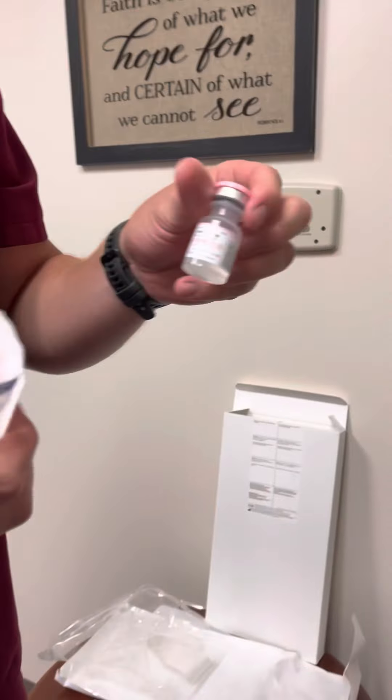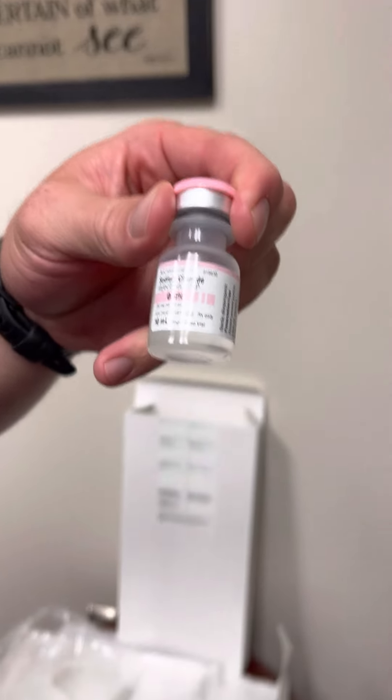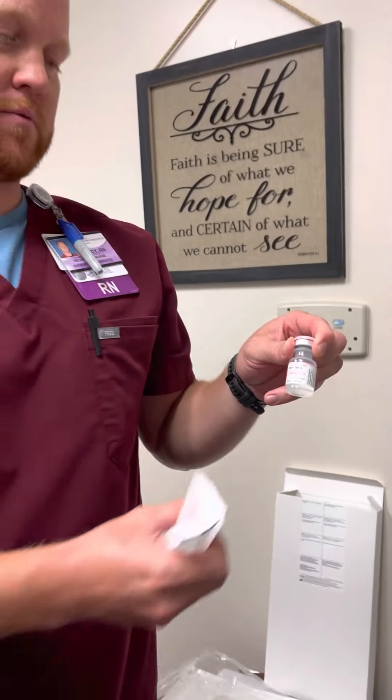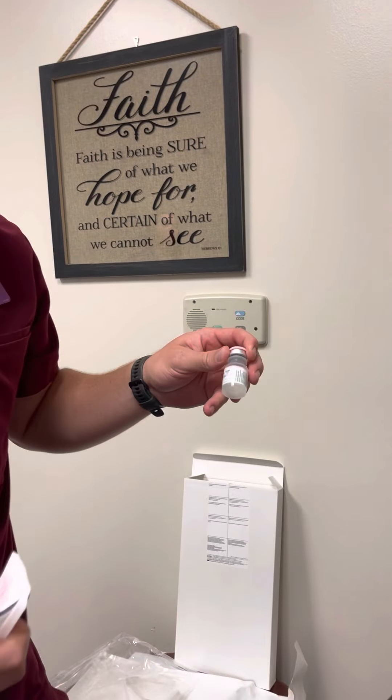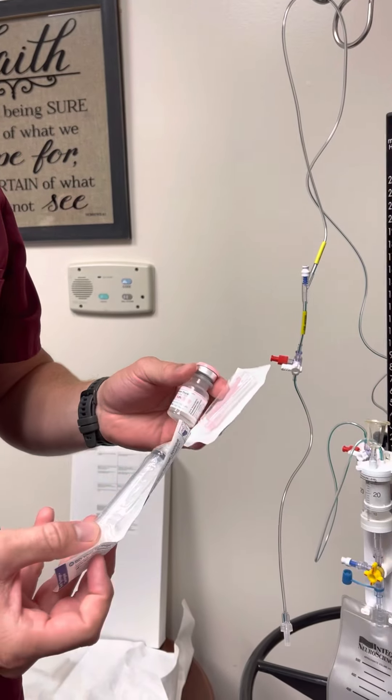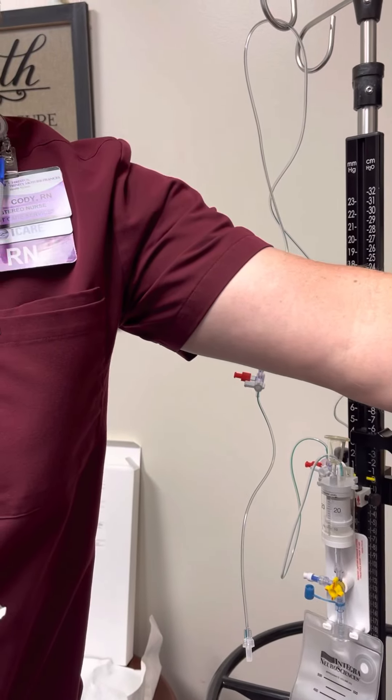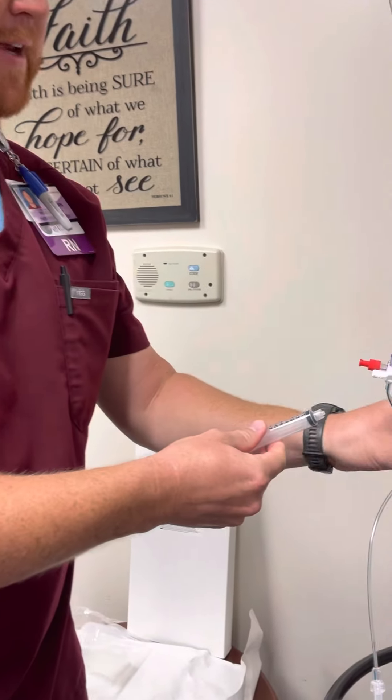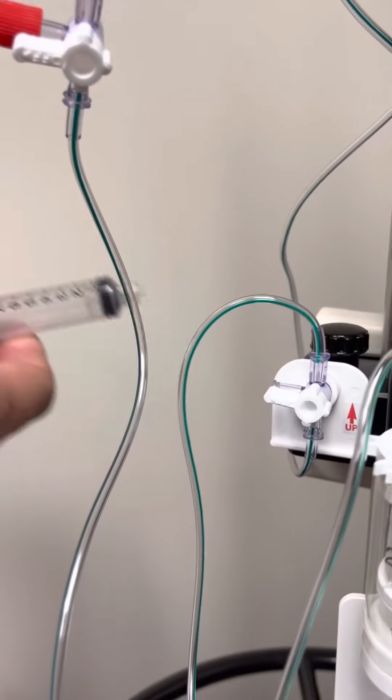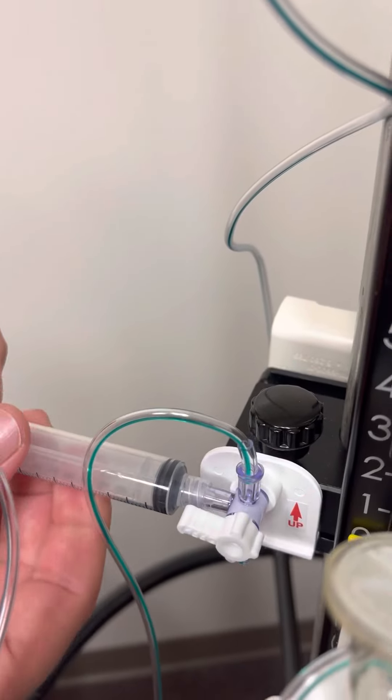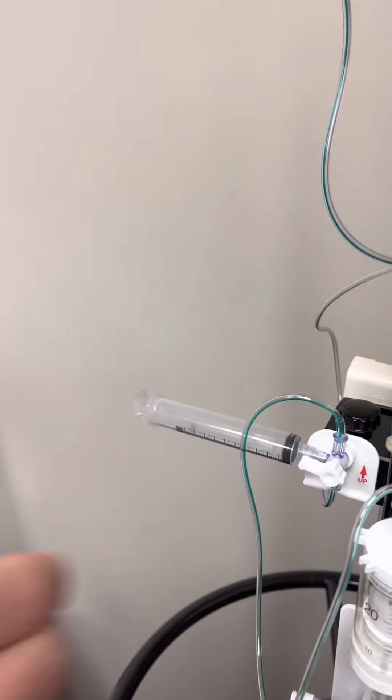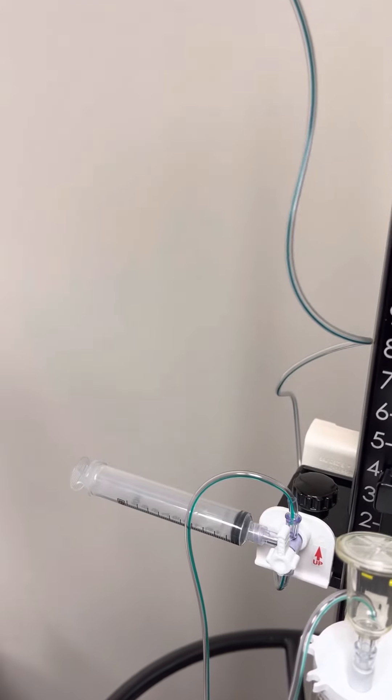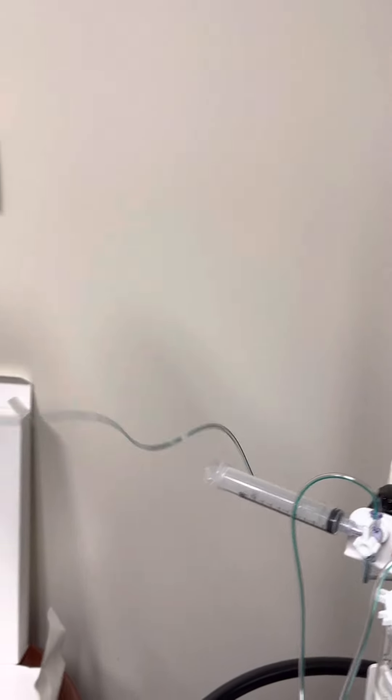This is preservative-free sterile saline. You can pull that out of the Neuro cart or in our Pyxis. It should be located in all Pyxis's. You will draw that up sterilely and then attach your preservative-free saline to the stopcock here. There's not necessarily a prime burst to the patient or to the drain, just making sure all the air is out of the system.